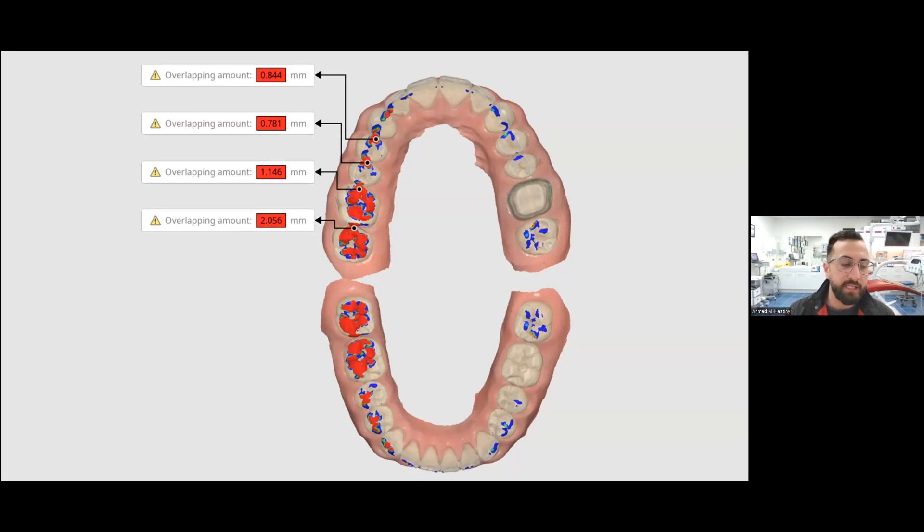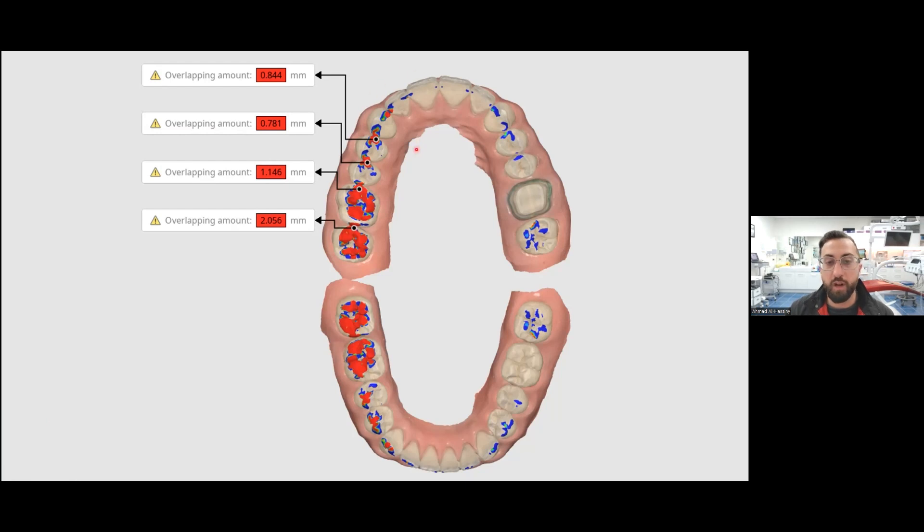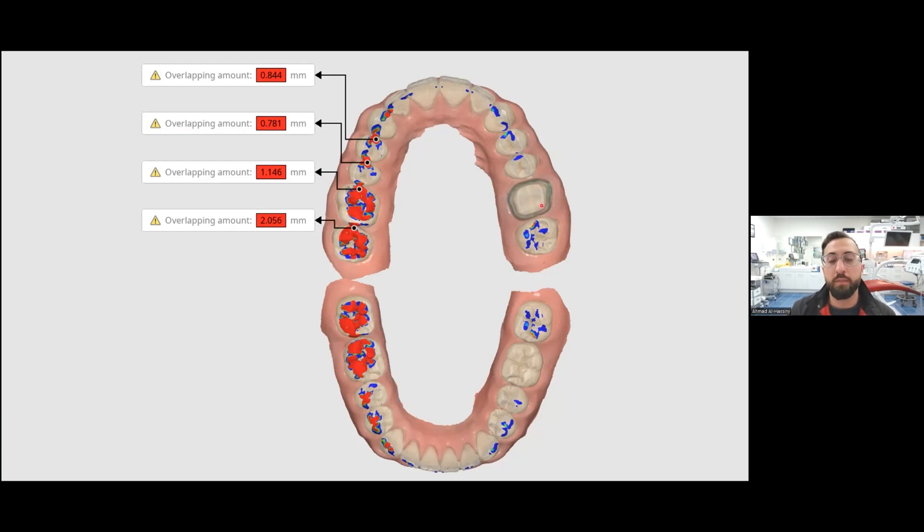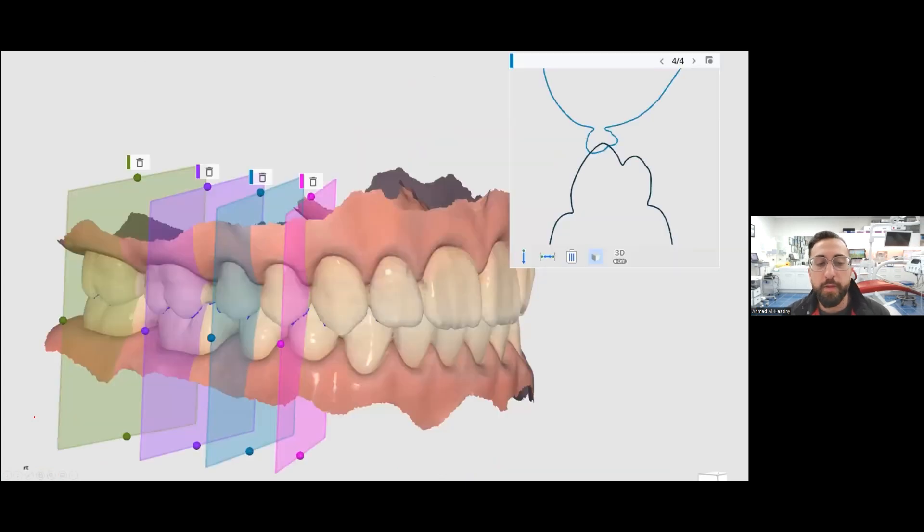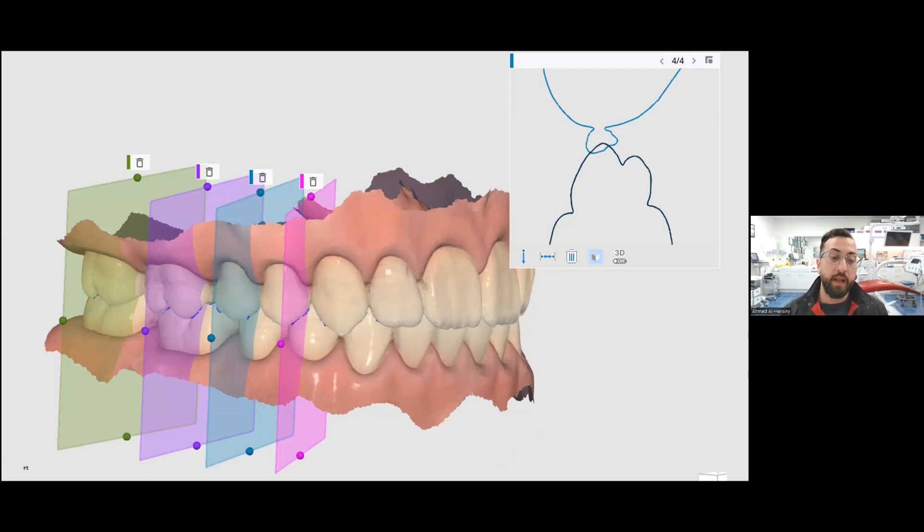And as you can see, this is what I was mentioning by the heat map. You can see that on one side over here, there's a lot of color. And on the other side, there's very little color. This is going to be a really big issue for us if we're making a crown here, because if the lab matches this bite as we've set it, there's a good chance that the crown is high. The other thing that it does is it gives you cute little intersections and all these tools to analyze the bite a little bit better.